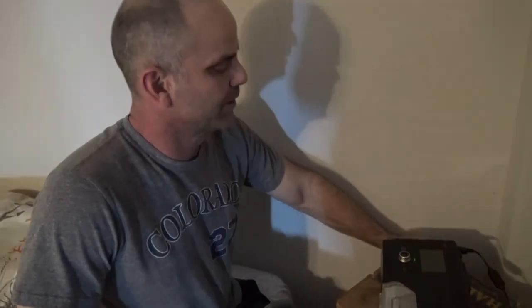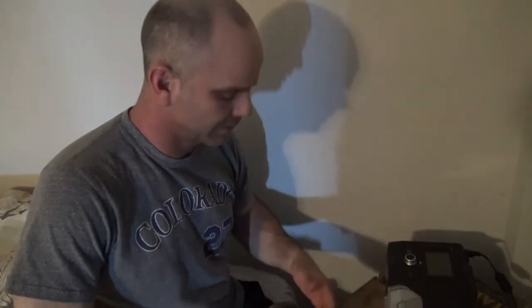I just paid for this one out of my own pocket and then submitted it to insurance. They said they would put it towards my deductible. Anyways, it's a Luna 2 3B digital CPAP machine.